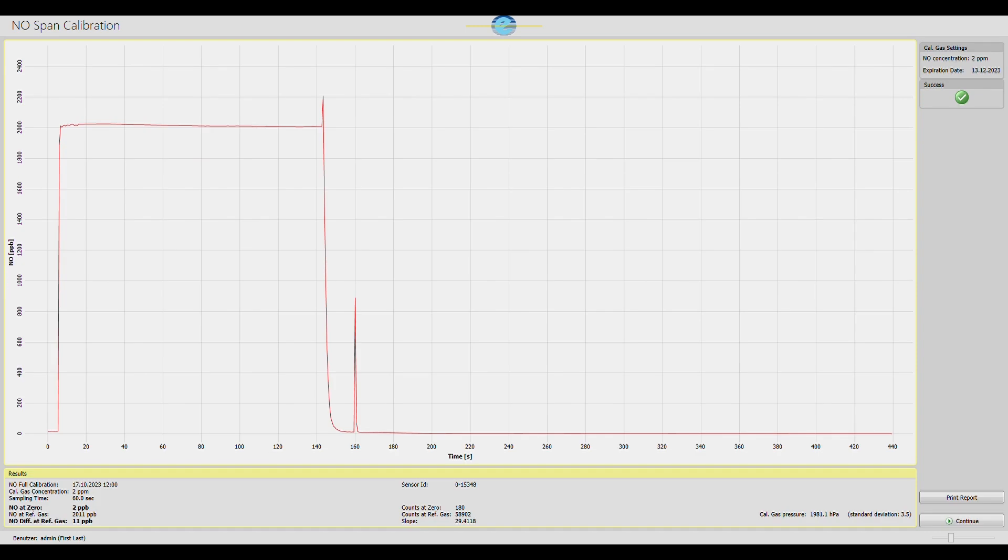The calibration takes approximately 10 minutes. A green check mark indicates the successful completion.